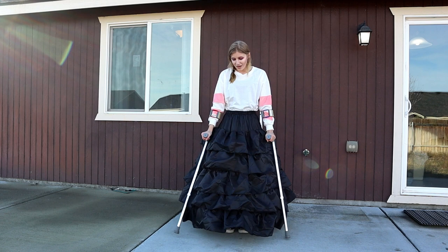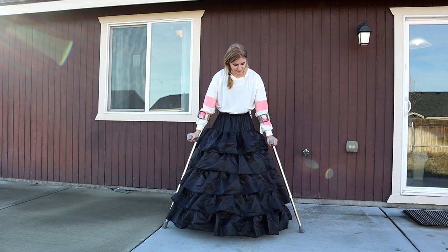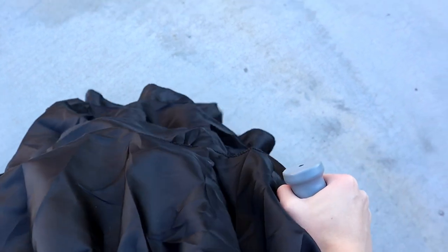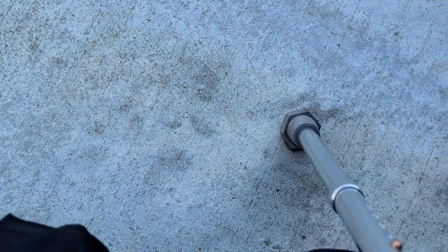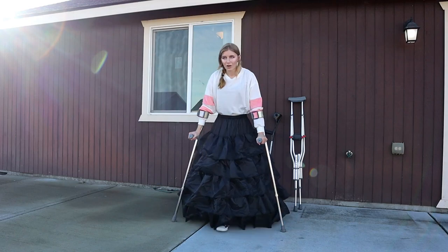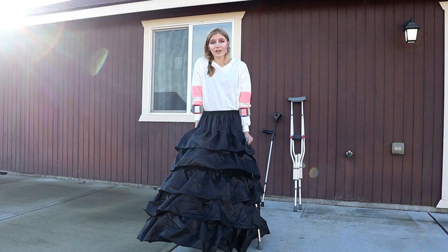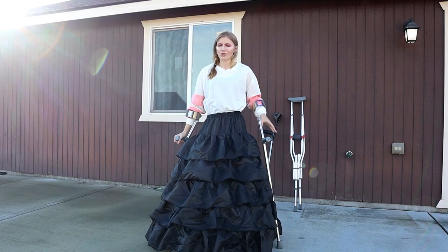So I think I'm going to have to try having my crutches all the way out at this angle. In order to be not in the dress, the crutch has to be at this weird angle. If you look at where it's contacting the ground, it's not making a flat contact at all — I'm on the very corner of the rubber stopper.